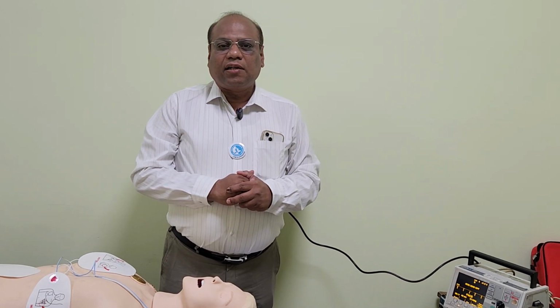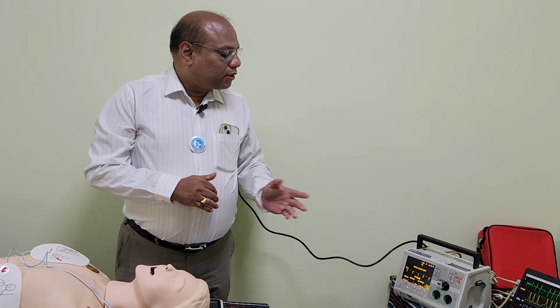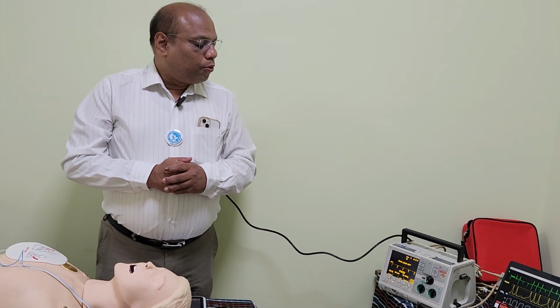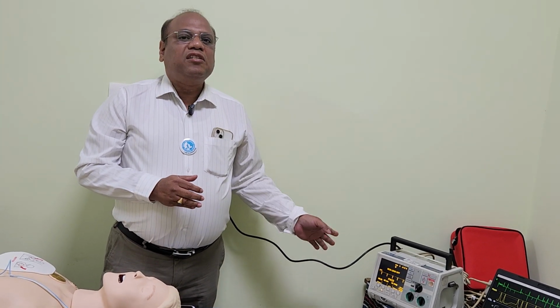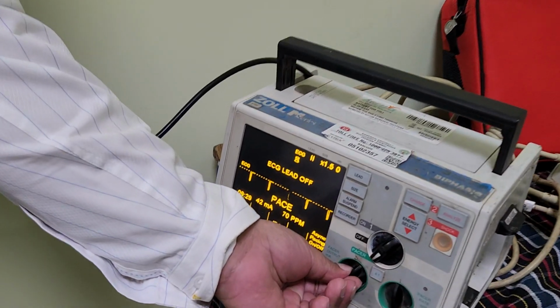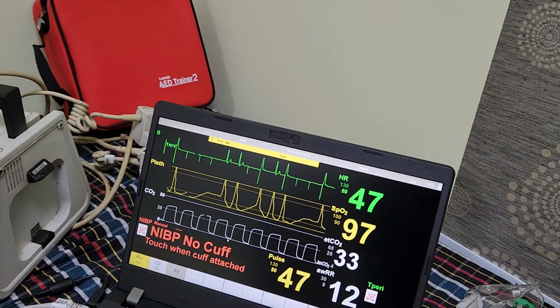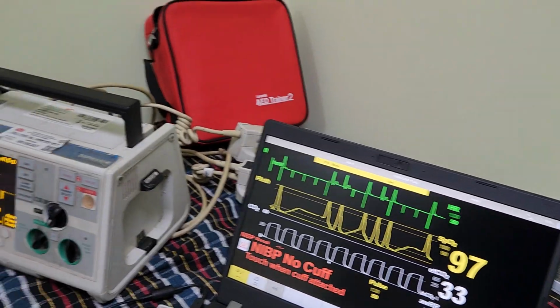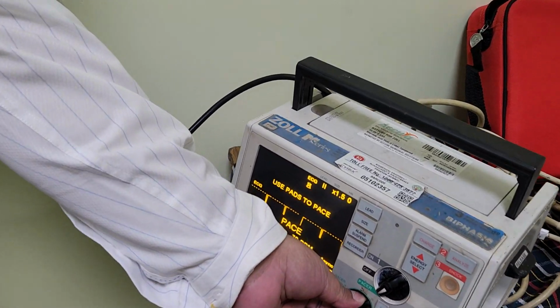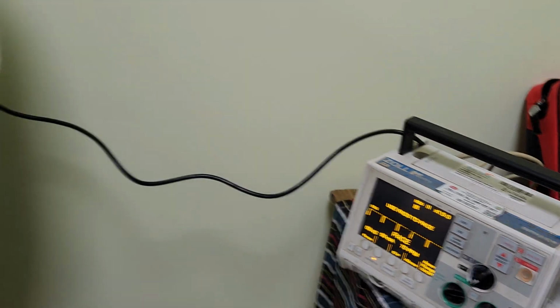Then the student should answer that we will again increase the output strength. Then again the student should be asked to manipulate the current output. The student should follow similar lines by increasing 5 milliampere and looking at the monitor screen to see if it is changing or not. After 2-3 changes, here at 40 to 45, then 45 to 50, the instructor should be ready to change the rhythm again to a complete electrical capture.